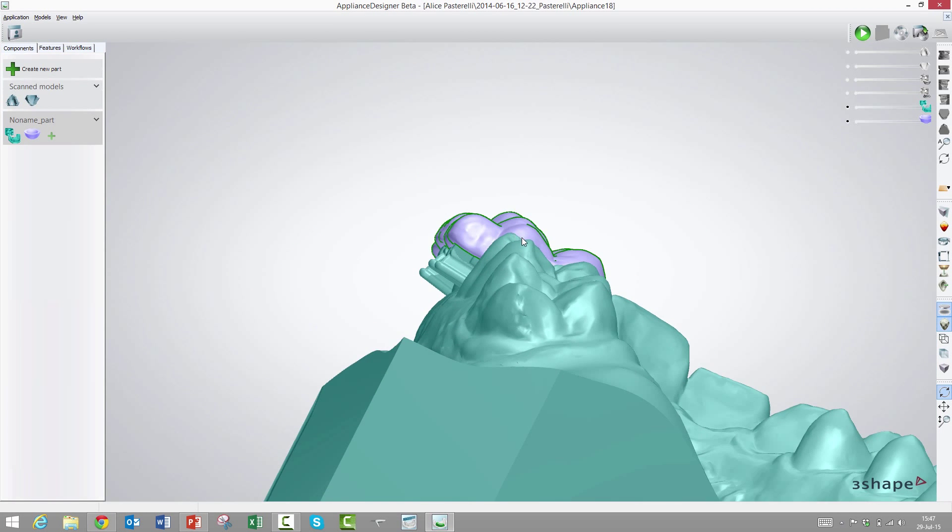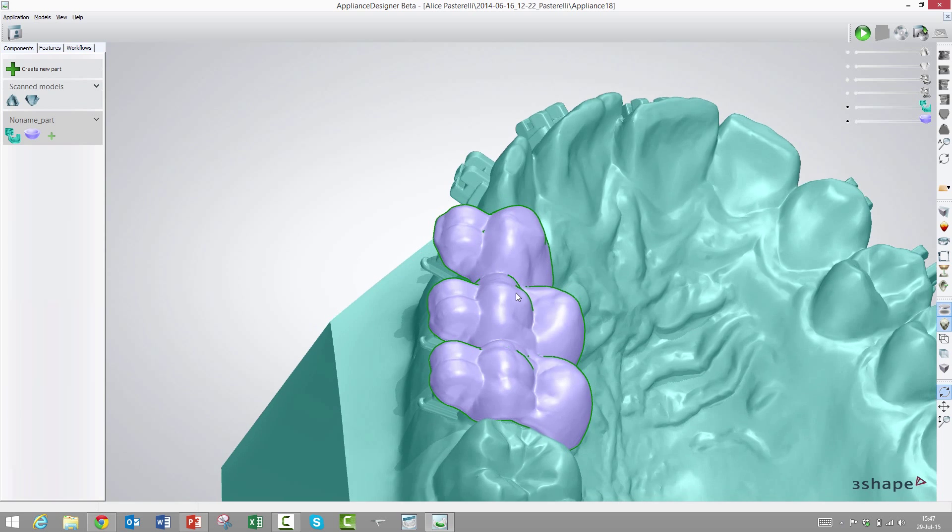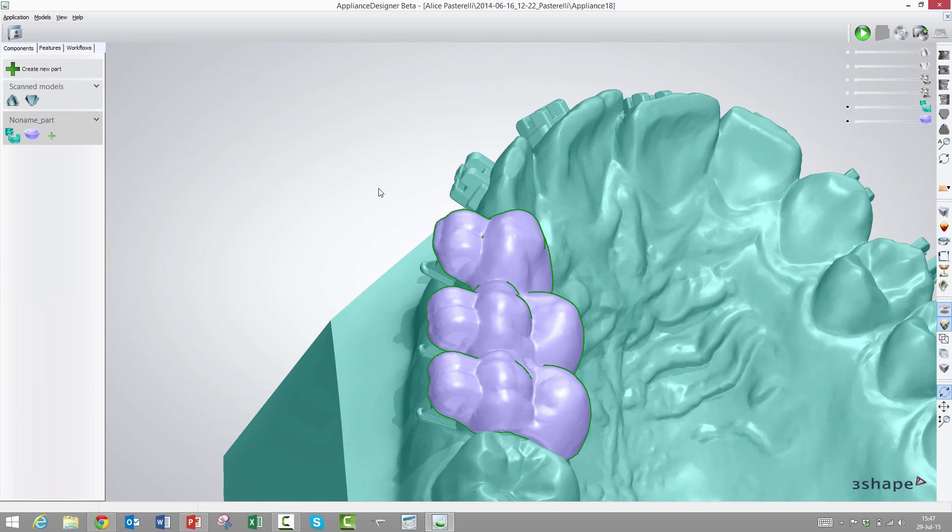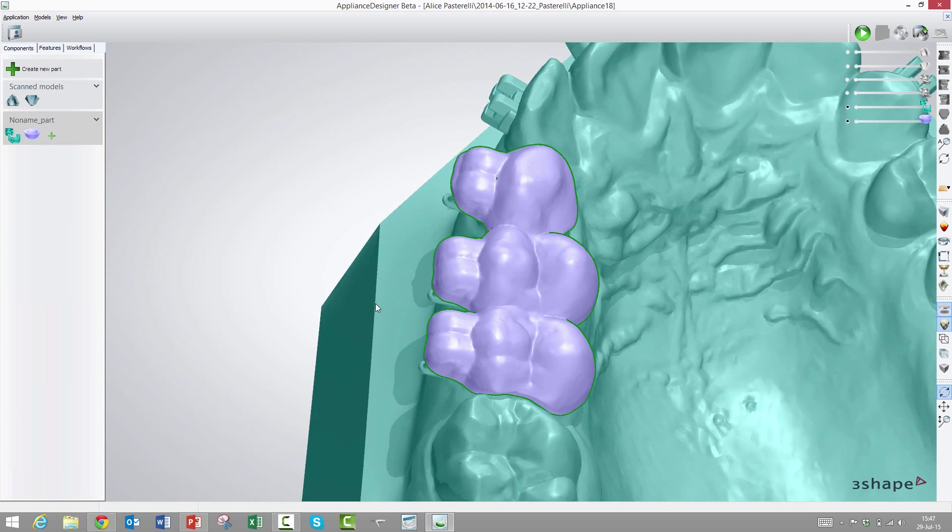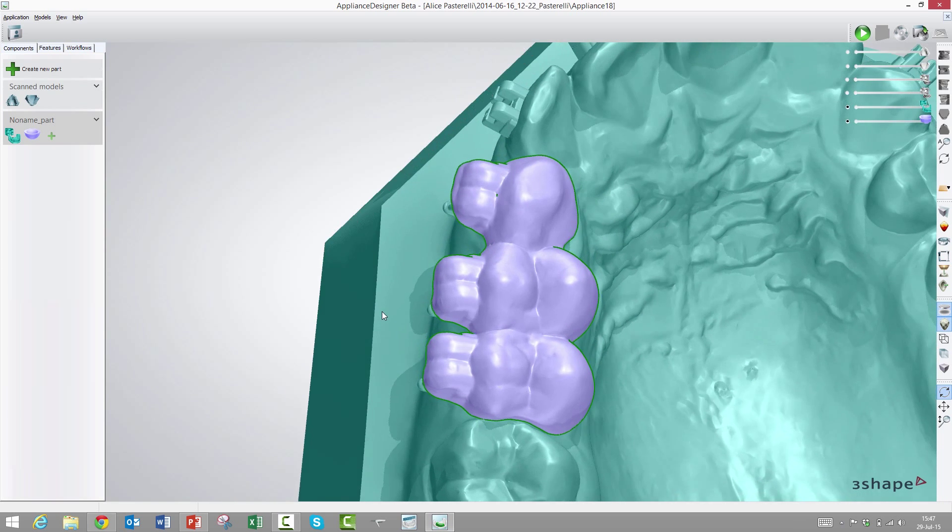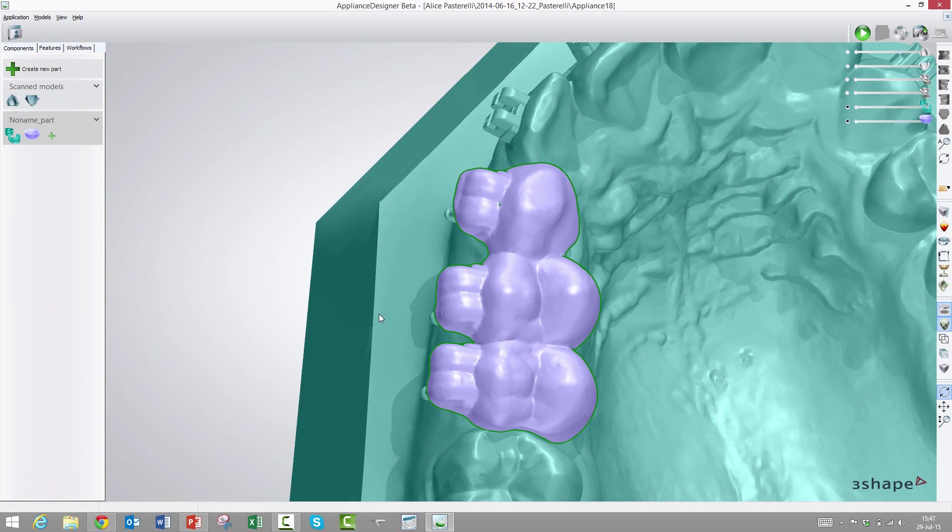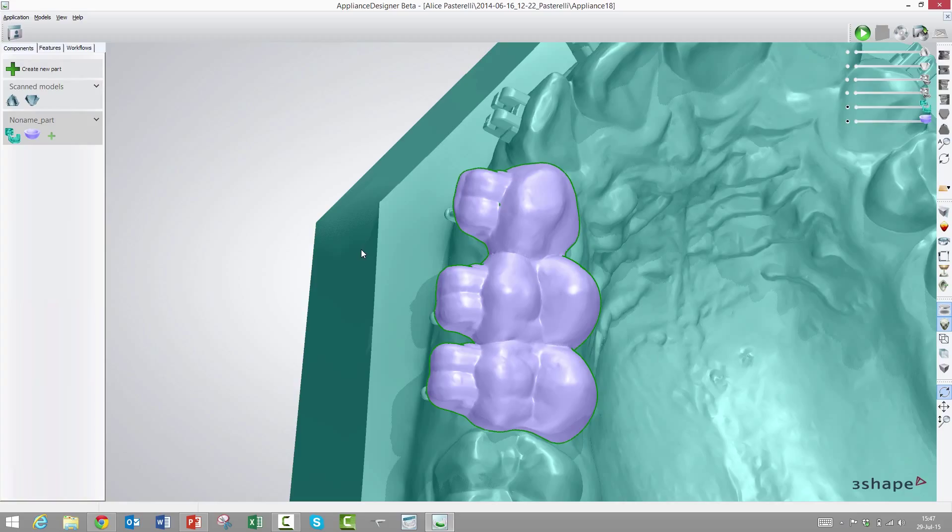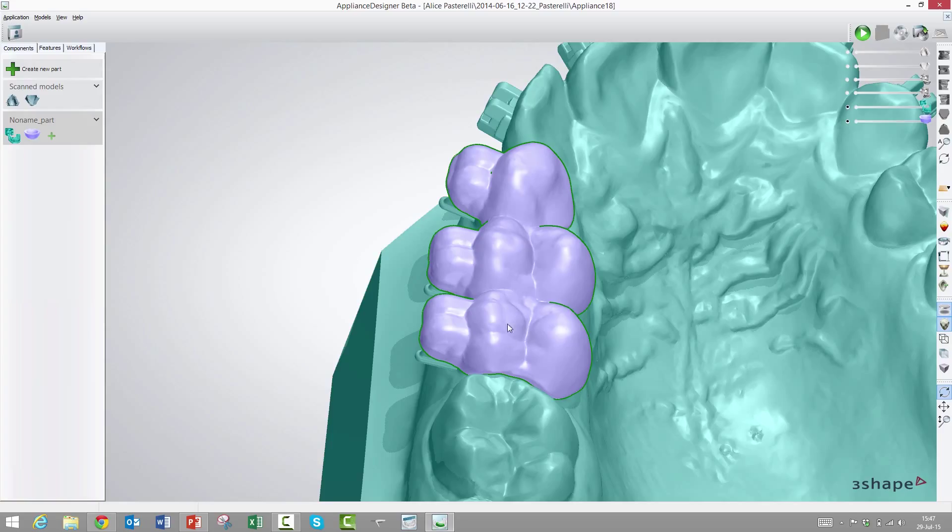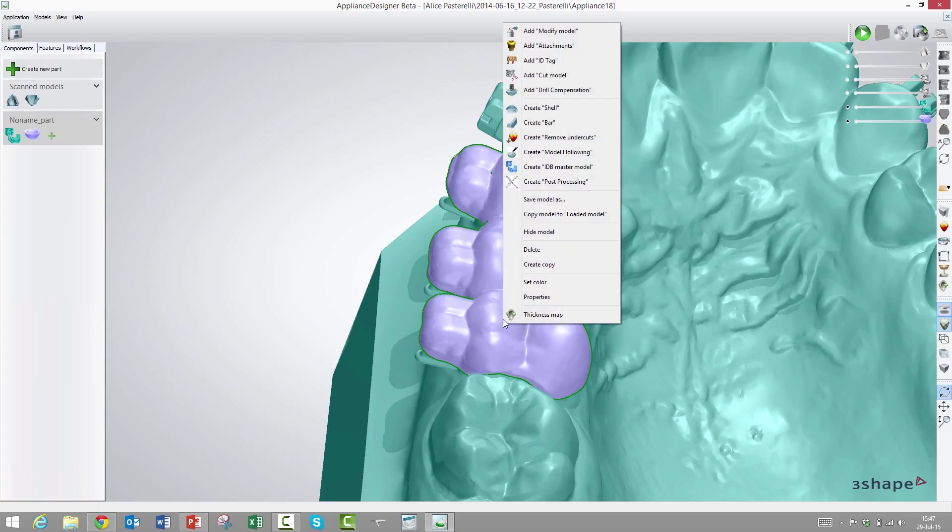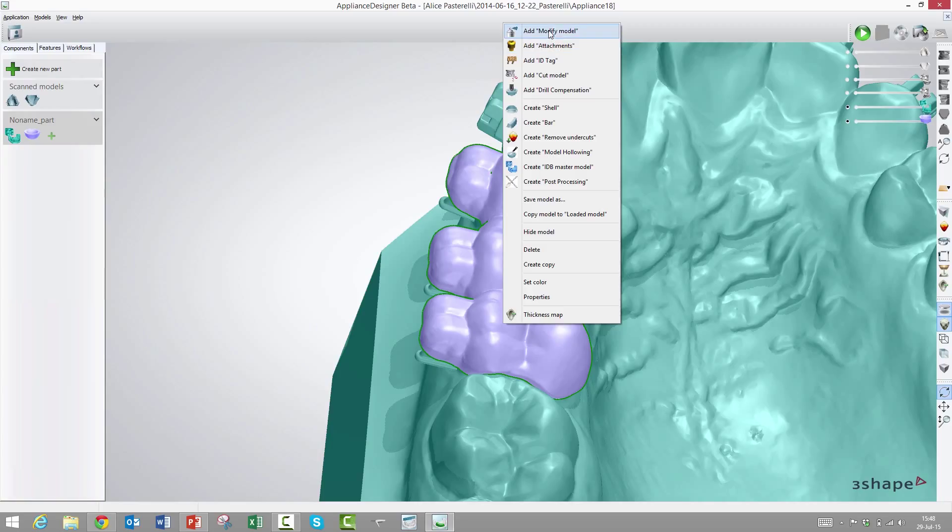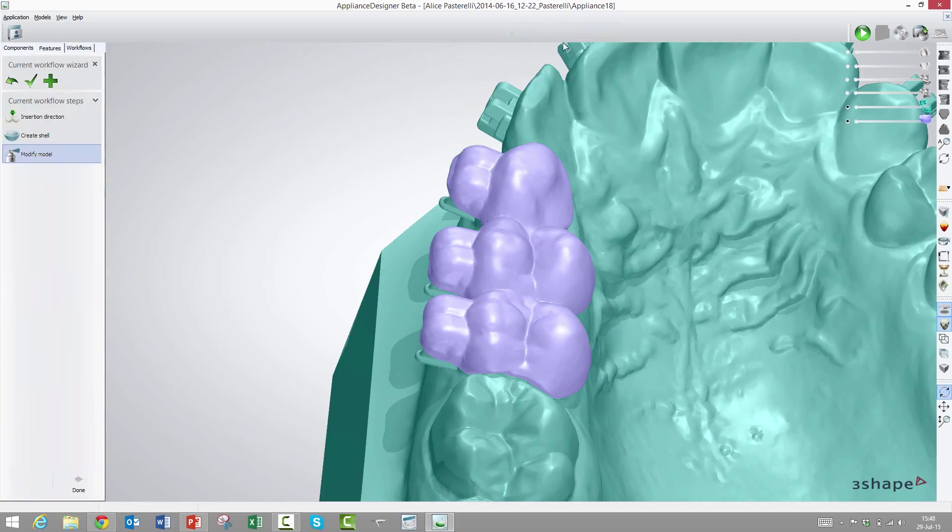One thing we could have adjusted is to make it various thicknesses. We have the possibility to decide how thick it should be. The default setting is one millimeter, but we could make it thicker if we thought that was appropriate for the material. If the material is rubber, you need some thickness for it, maybe a millimeter and a half or two millimeters.